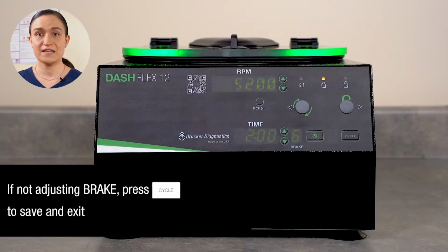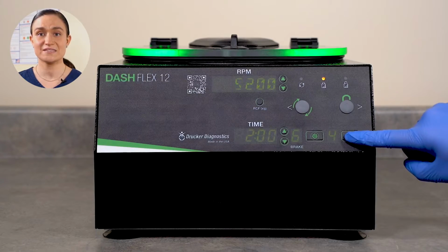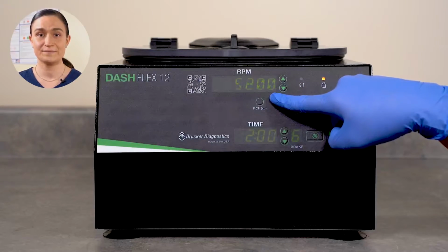If you just want to edit the RPM and time values, you can press the cycle button to save and exit edit mode. You can check the new settings by pressing the cycle button until the name of your preset cycle shows in the RPM screen. The name of your preset cycle will alternate with the RPM value.